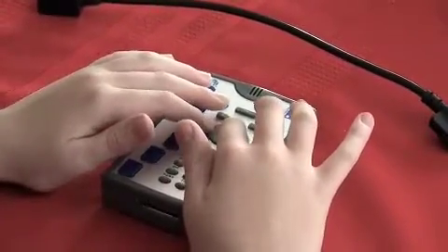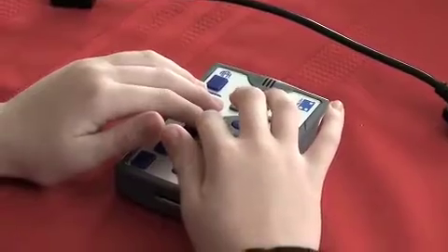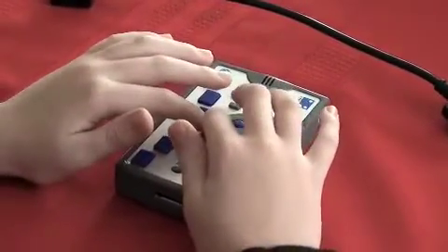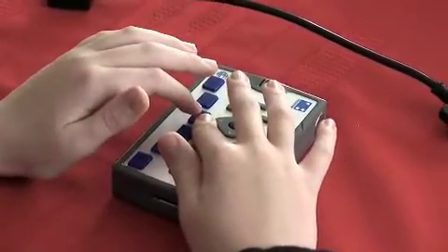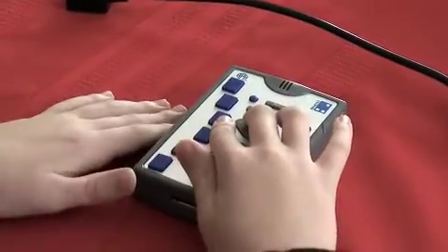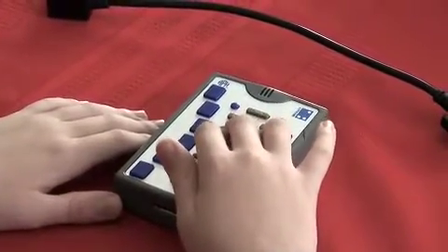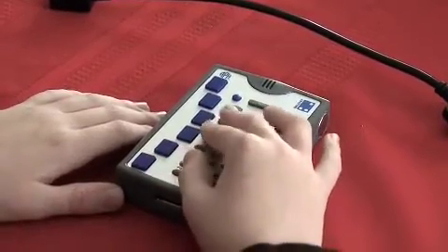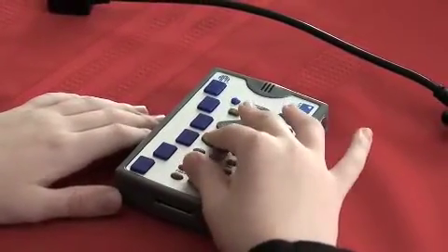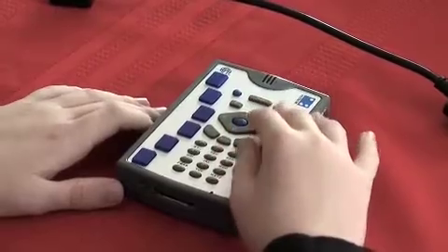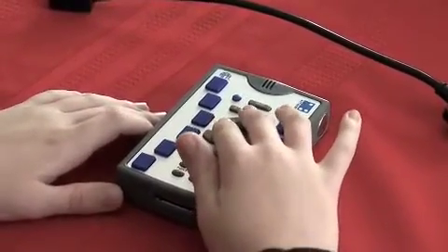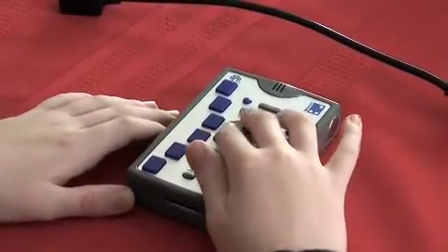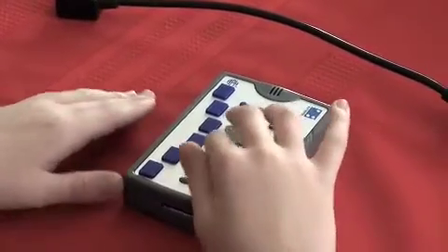Below the diamond shape keypad and select is OK. On the very left, there's a group of three keys and OK's on the very left. And if you press it, if you're in a menu, it performs the same operation that Select does. If you're in a document or an email, it will perform and make a new line such as the Enter key on a keyboard. Or it will activate a link if you're browsing the internet.